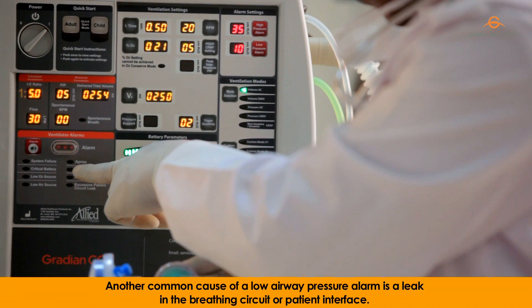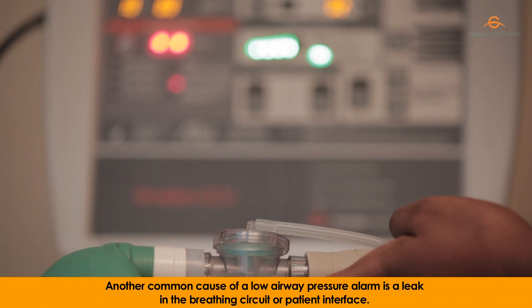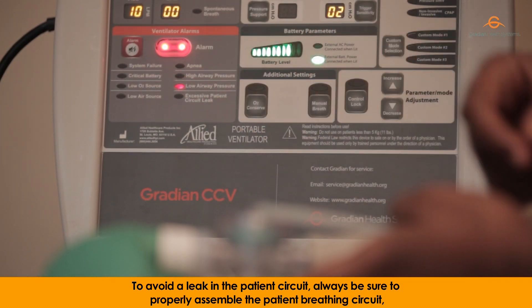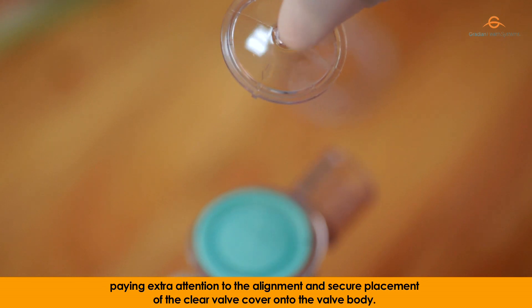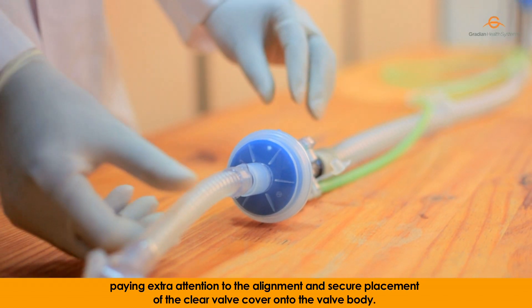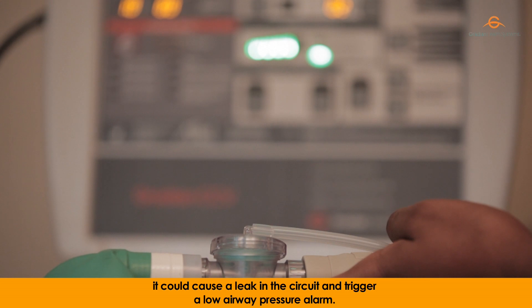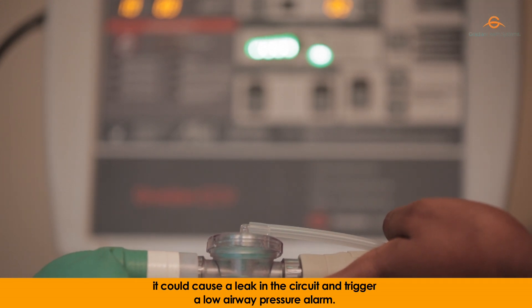Another common cause of a low airway pressure alarm is a leak in the breathing circuit or patient's interface. To avoid a leak in the patient circuit, always be sure to properly assemble the patient breathing circuit, paying extra attention to the alignment and secure placement of the clear valve cover onto the valve body. If this is improperly aligned or if the valve nut has not been screwed on tightly, it could cause a leak in the circuit and trigger a low airway pressure alarm.